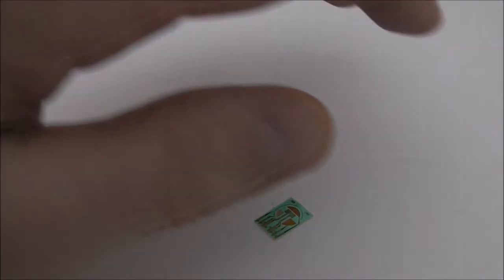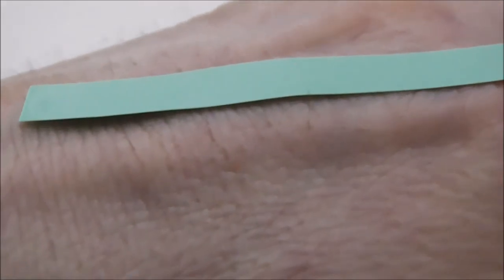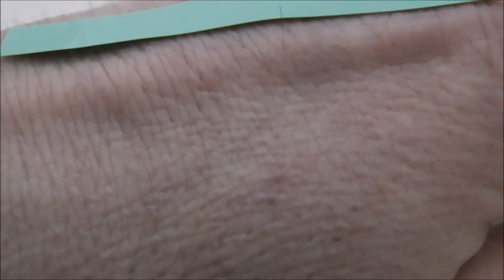Effectively, these kinds of materials can be worn on the surface of the skin, pressed down to make contact.